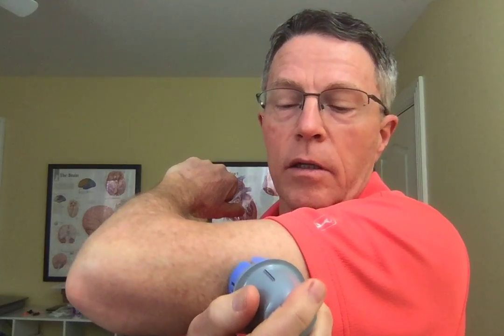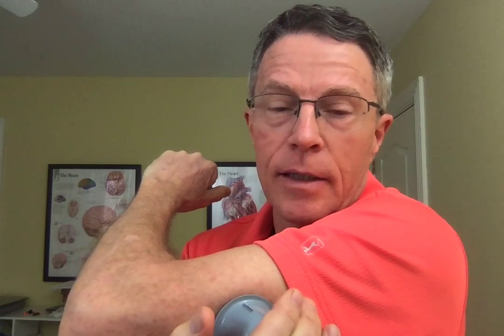I thought it might be more helpful to show you the first time I did one of these on myself, which is now. So you get to witness some of the messiness and confusion. A lot of people will wait a few minutes before they actually push it down — there's no pain, there's no need to do that. Hold it down for a few seconds. There you go. So that's the application of the sensor.